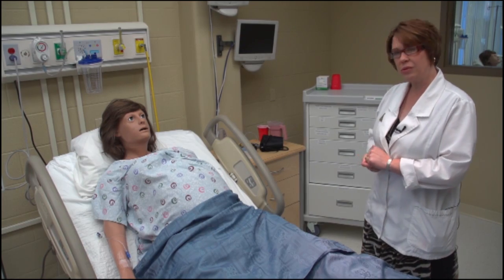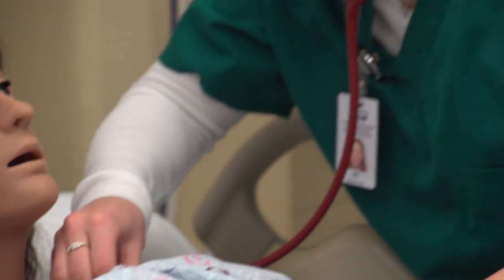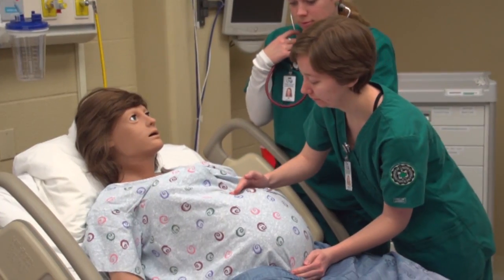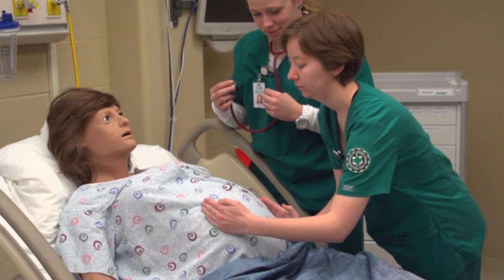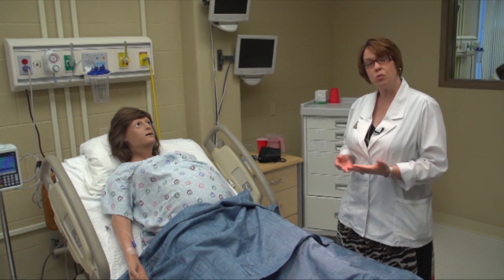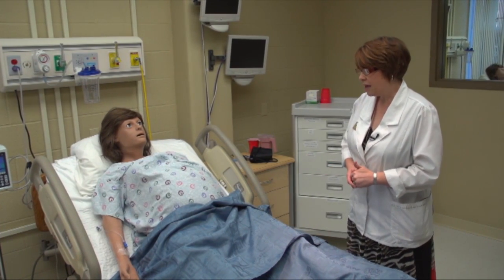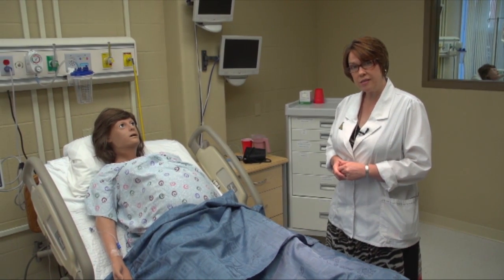That's another really nice feature that she has. She has a heartbeat and she has lung sounds. And then the really fun thing — she has an actual baby in her abdomen that we can feel the position that baby is in. She goes through a labor process where she gives birth, and that is also very realistic for the students who might not have that experience live.